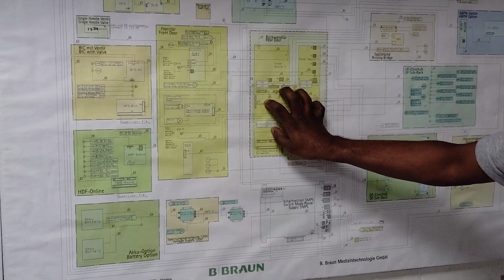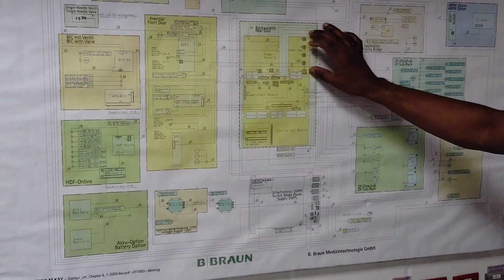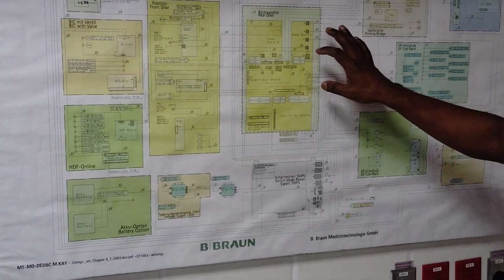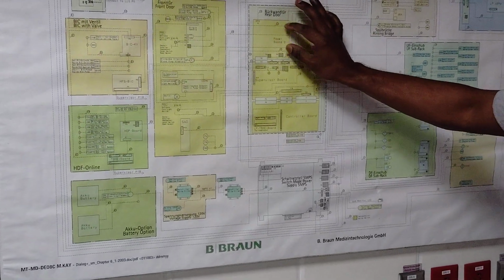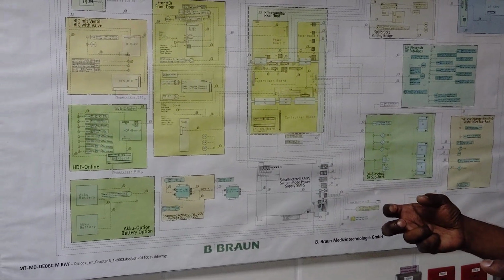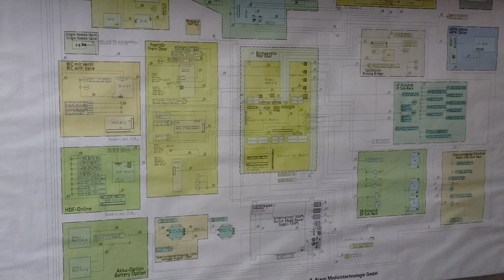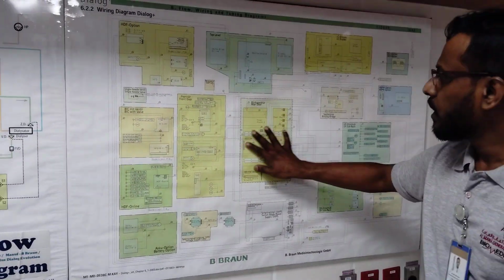There are many controls over there. Then there are power board 1 and power board 2. There are different pumps, valves and different modules, having different inputs and outputs. So they kept power board 1 for one purpose and power board 2 for a different purpose. They will take the main supply from the SMPS and give the voltage that is needed for running the pumps.